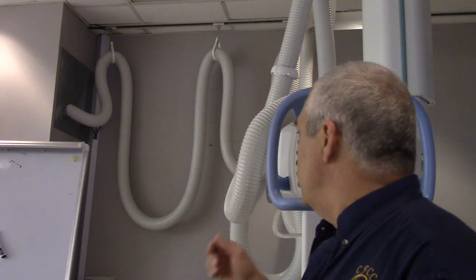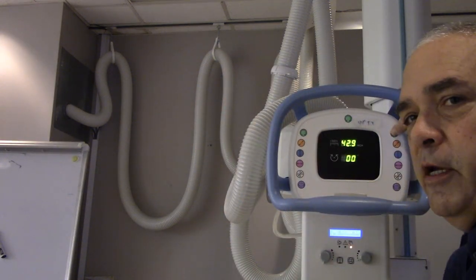Now why would we possibly be off at all? How come this thing isn't exact like it was the day it was installed? Well, over the course of time, some people, and you may have noticed this in your own clinical practice, some people are not exactly gentle with this equipment. They'll grab it and just spin it around and slam it into the wall.